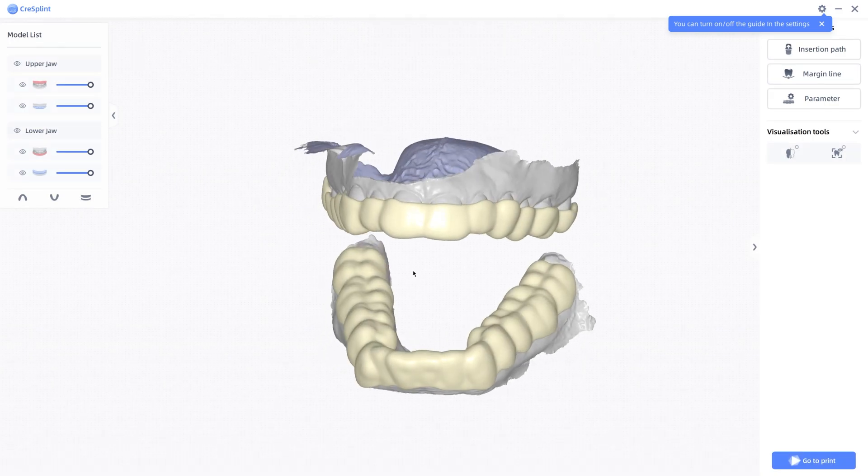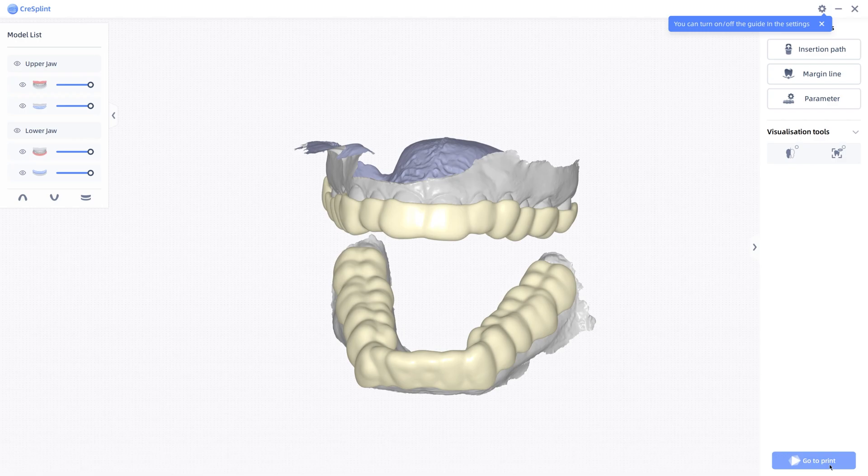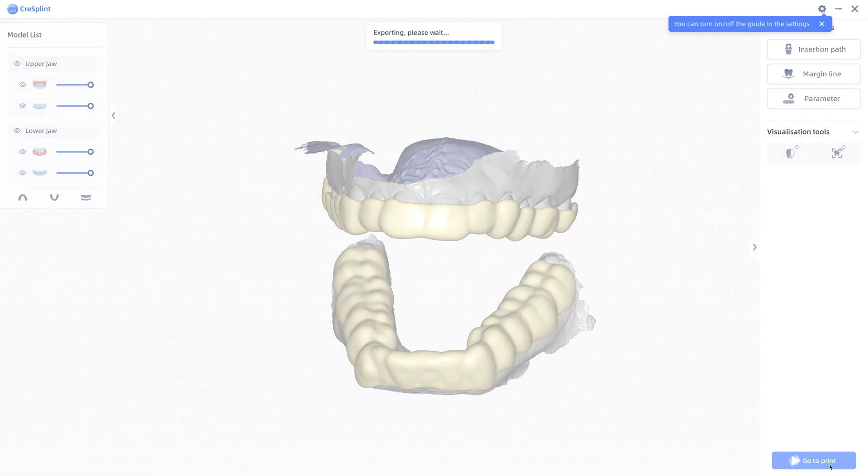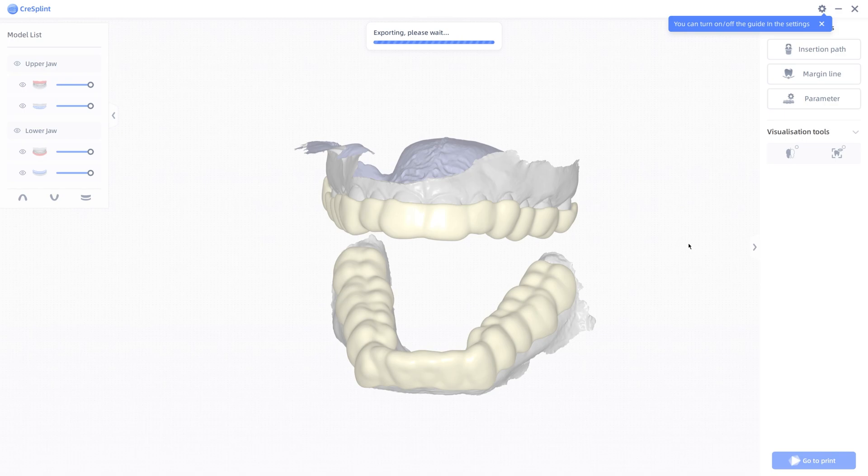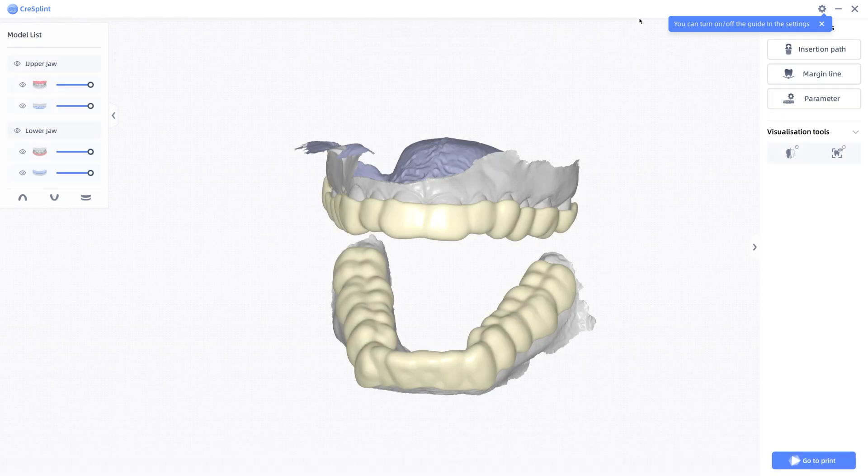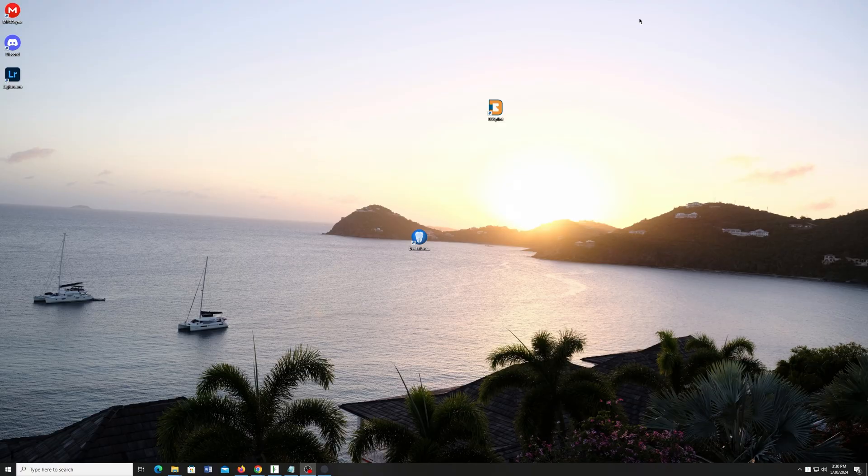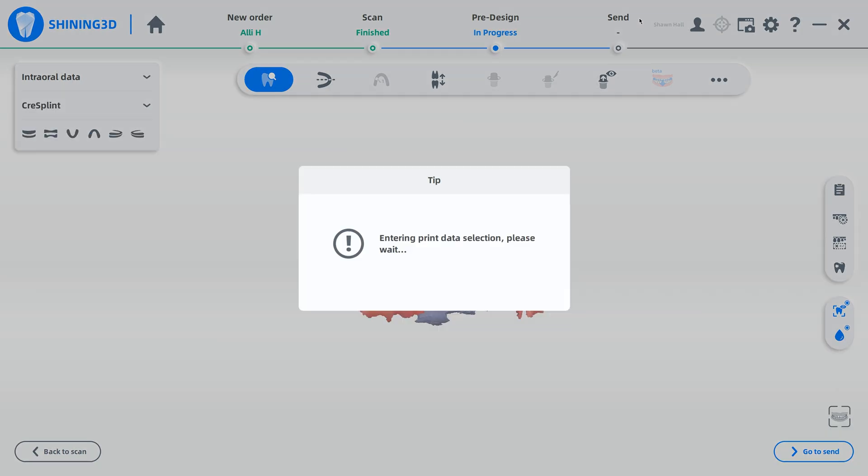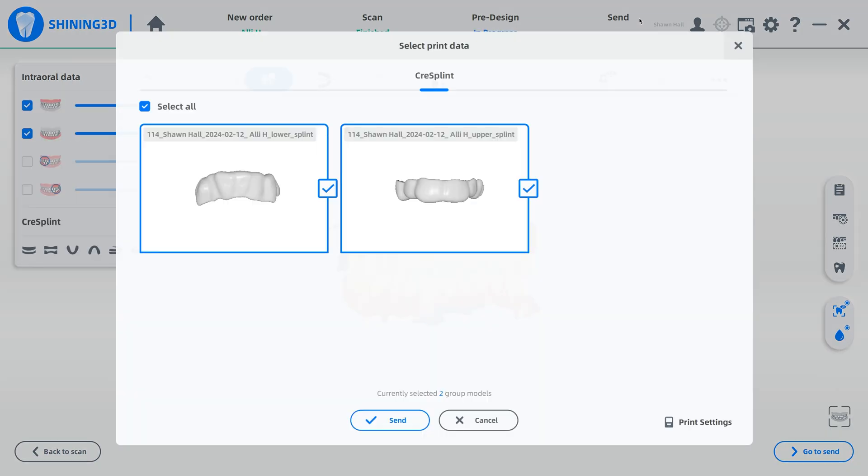So like I said, if you've got the printer attached, you can just go to print at this point. And you're ready to rock and roll. If you do not have the AccuWear print software installed on your computer, or if you're unfortunately not using the Shining 3D resin printer, which, by the way, you should be, because it's probably substantially less expensive than whatever 3D printer you're using in the dental world.